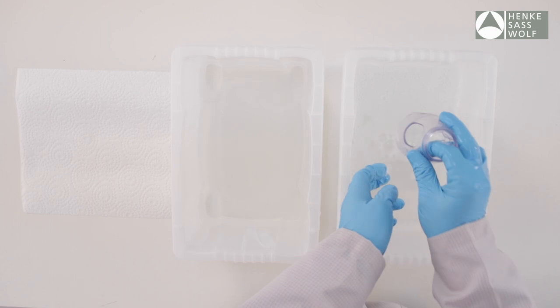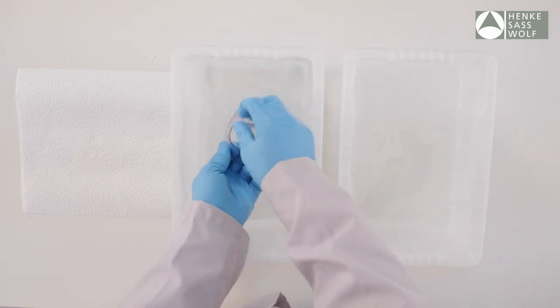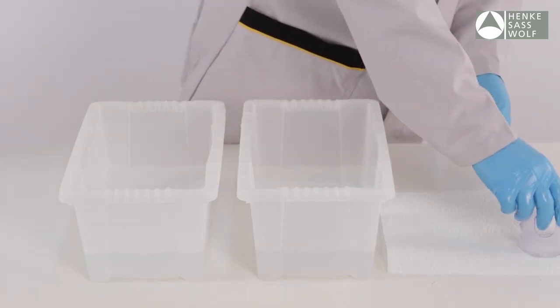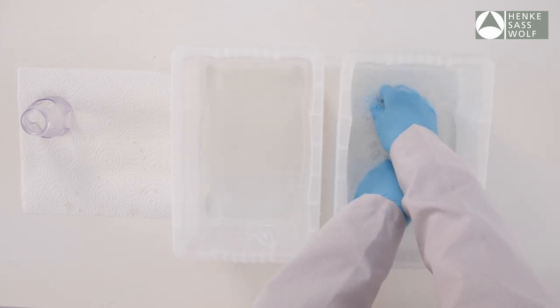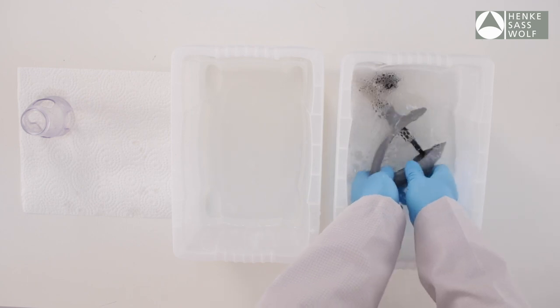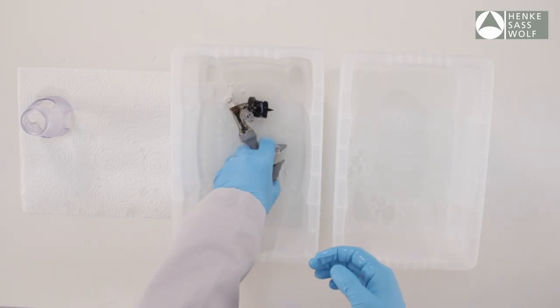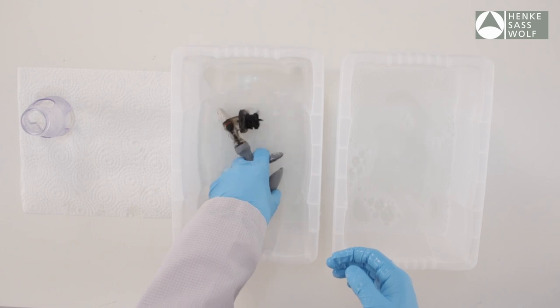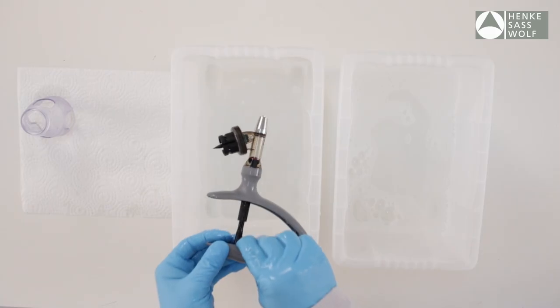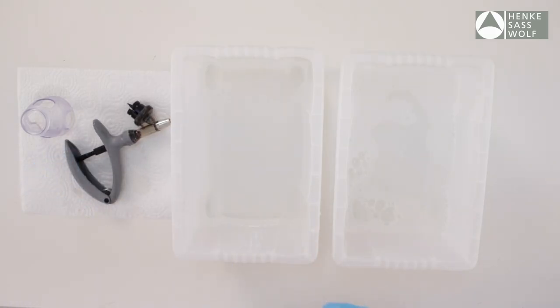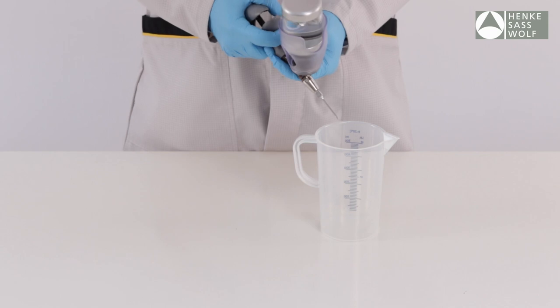Remove all traces of material from syringe by flushing thoroughly with a hot water detergent mix. Rinse thoroughly with clean warm water. You can also suck warm water into the barrel by using an attachment bottle with warm water.